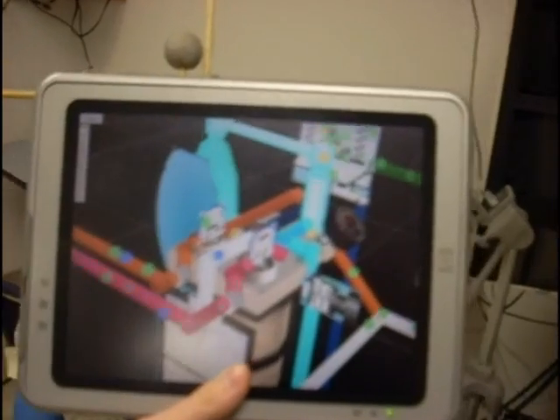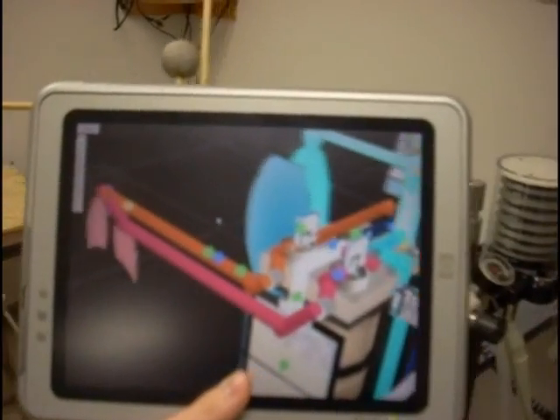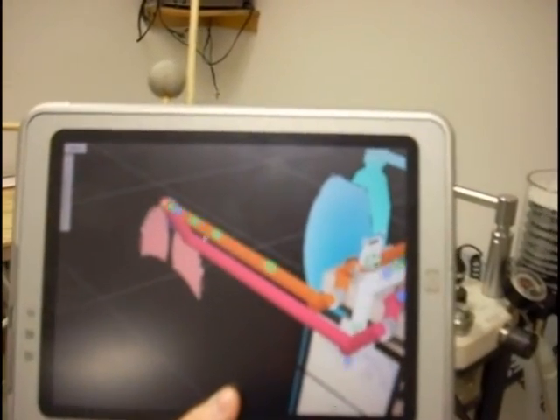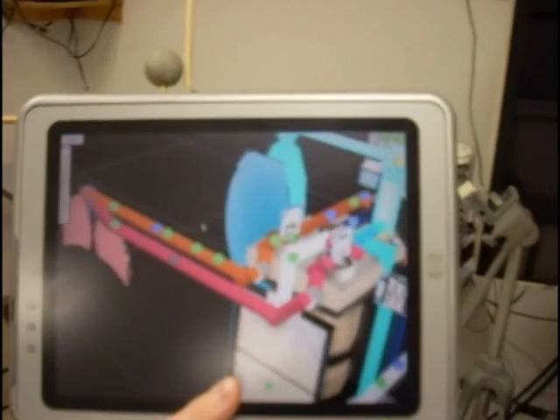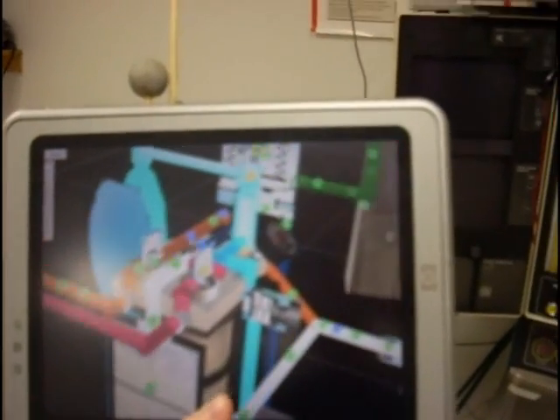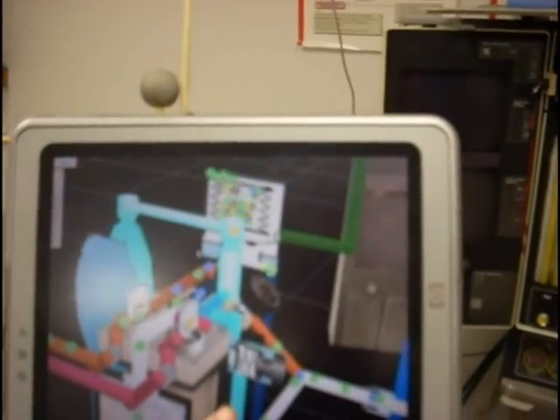To visualize the simulation, users interact with a magic lens. The lens is tracked with an optical tracking system and retroreflective markers.